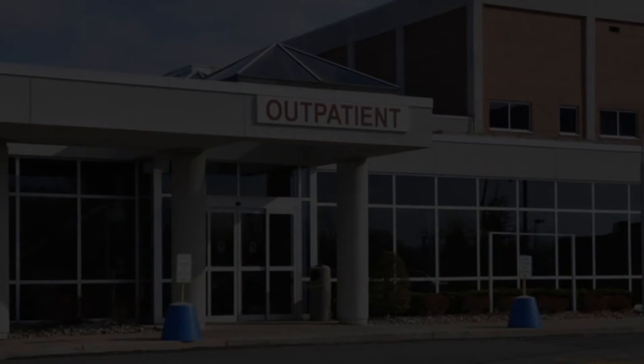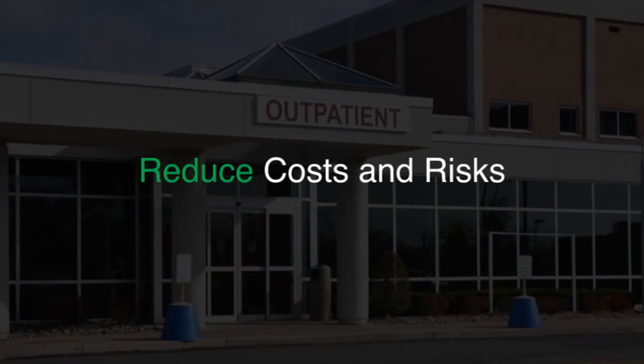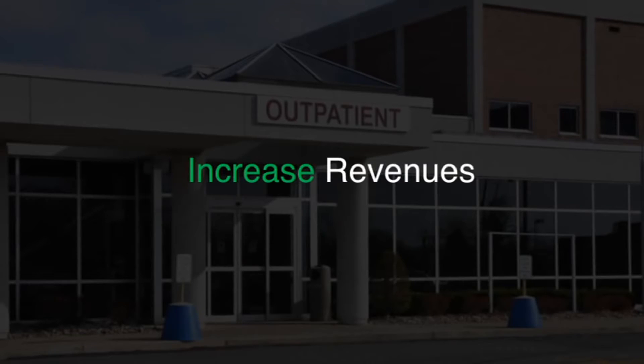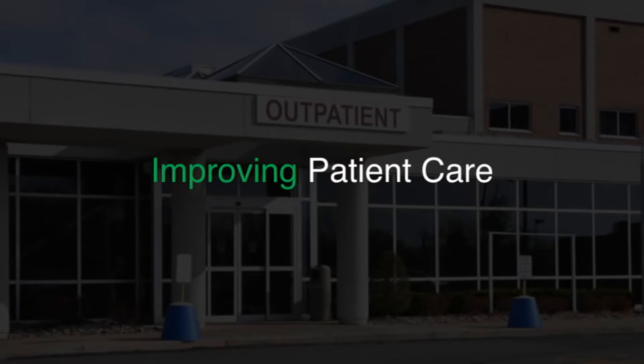What if that same device could help reduce costs and risk while increasing revenues, patient satisfaction, referrals, and improving patient care?